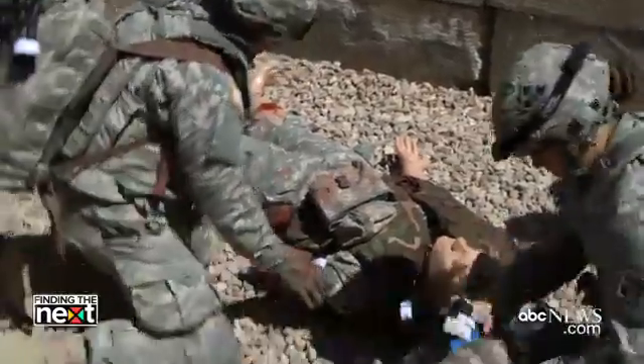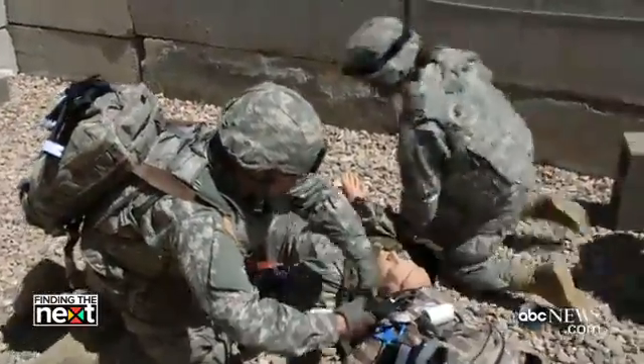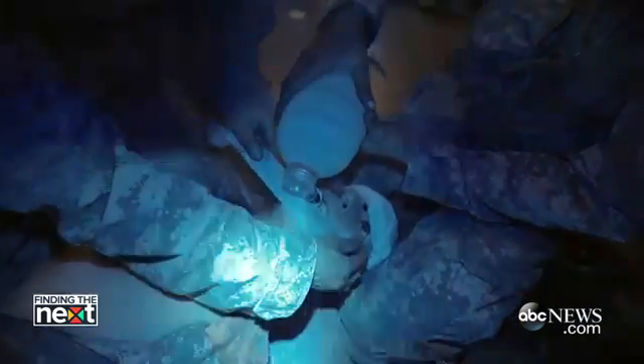Give me a tourniquet. No — get your own tourniquet. Go to the next letter. Here at Fort Carson, we have about four or five different dummy trainers. Depending on the scenario we want the students to get out of it, we'll use different mannequins at different times.